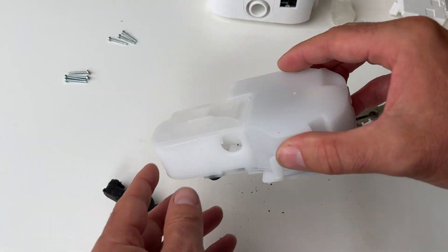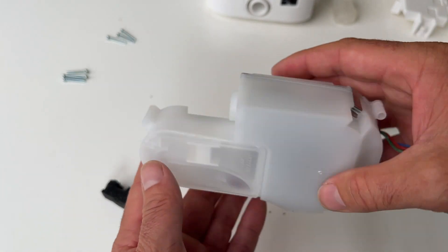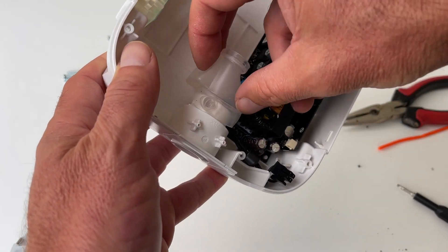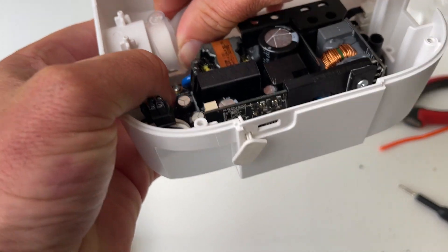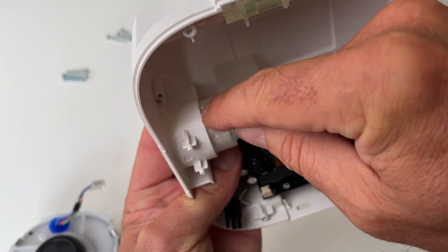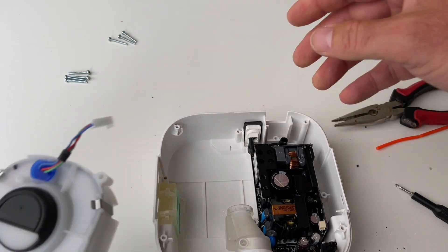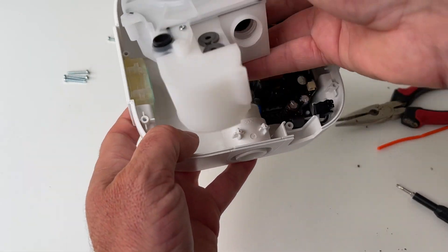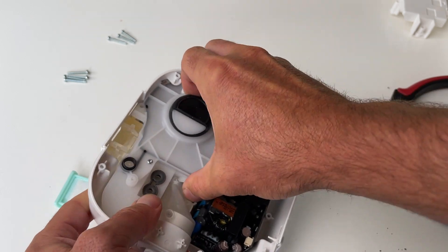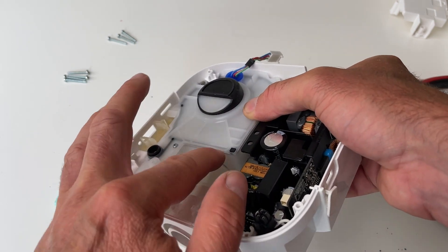It's sticky — it's started to degrade. There are a few little bits in there but you can just get your blower and blow that out. Get this on first, so you just got to line up that hole there on top of the other hole — some sort of pressure sensor hole I imagine. It just wiggles back on — it's got little grooves on the side where it goes on. You can put this back into place so it sort of feeds in at the back first. Just work it around a little bit and then push that part on as well — just make sure it's on right around the whole thing.